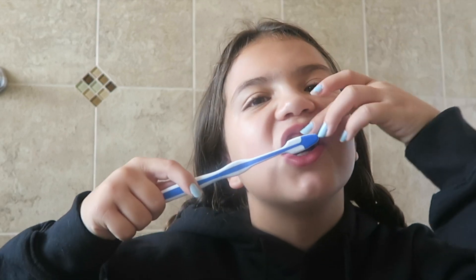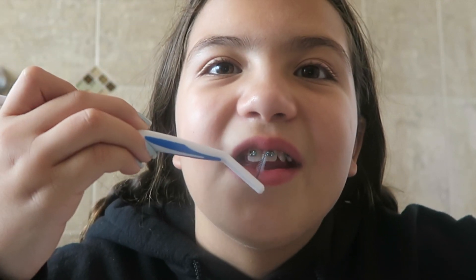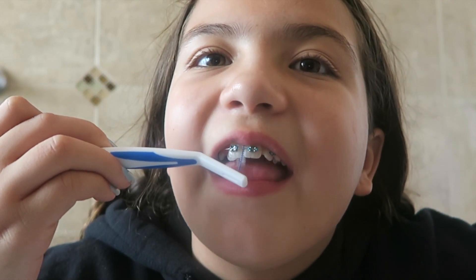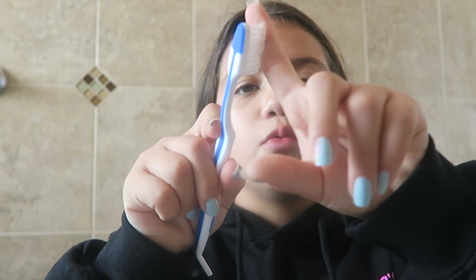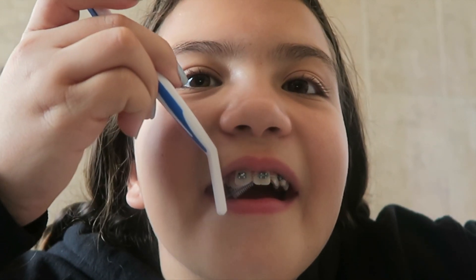My toothbrush that I got was a regular toothbrush. I like these toothbrushes better because it's easy — you press the brush up, under, and on top of your gum and on top of your braces. And this is also very important. This is just a little brush, it has a pointy end on the top. You can't put that on your gum or it will hurt. After you're done brushing and you wake up with food in your teeth, you take this, put it in between your wire, and clean the inside of your teeth and places that you couldn't reach with your brush.